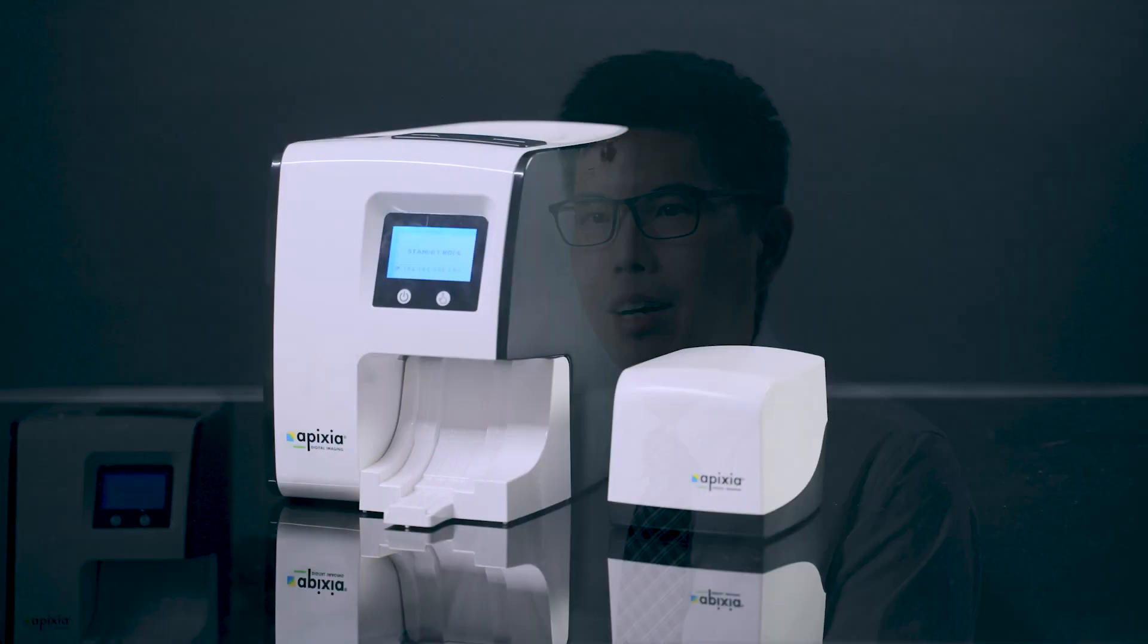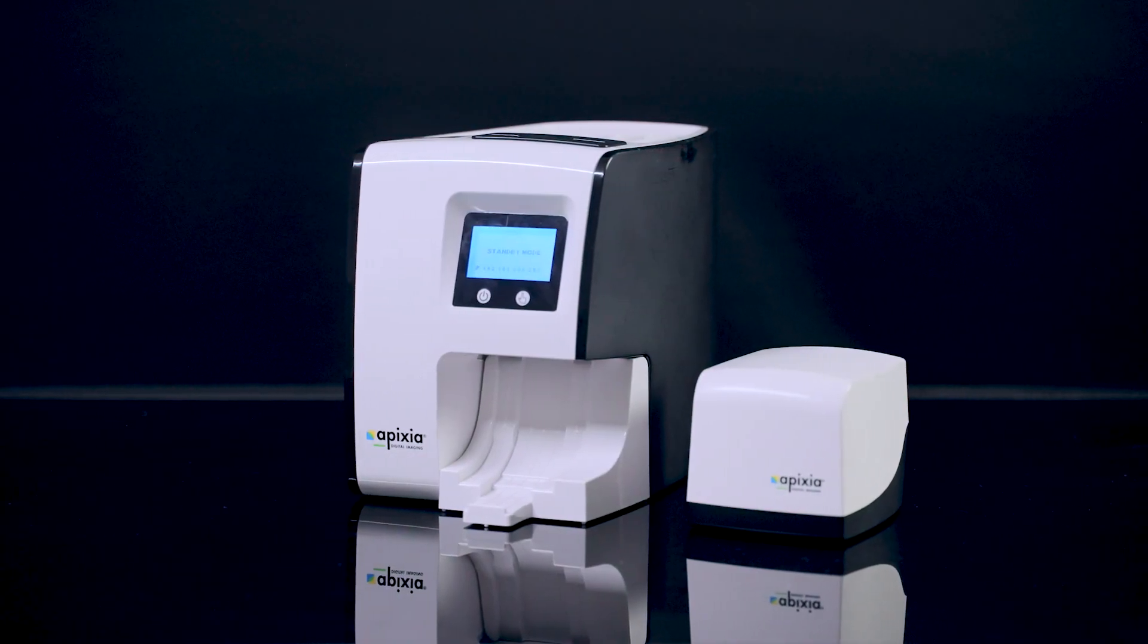If you are working in veterinary dentistry, the Apixia EXL PSP scanner will definitely be your essential tool for your daily practice. Thank you.